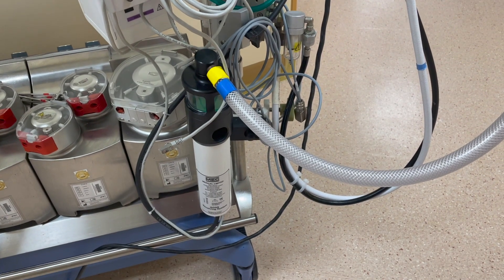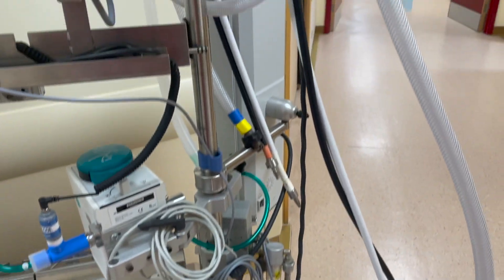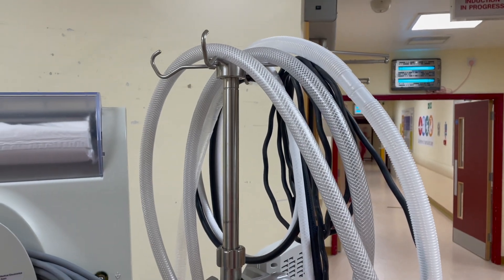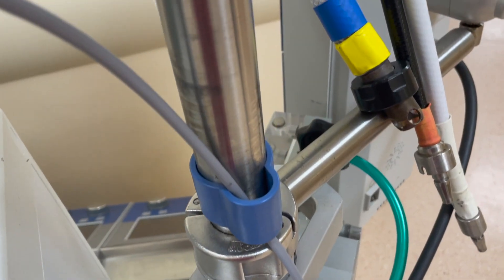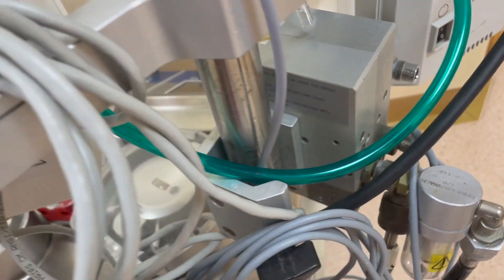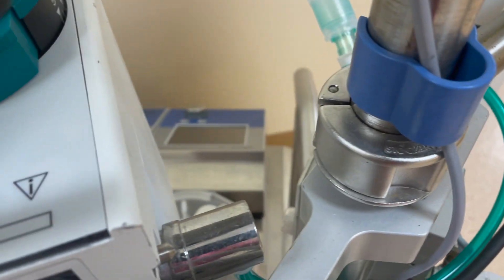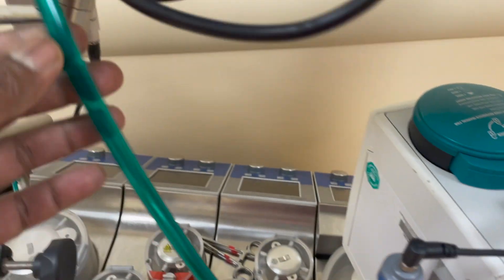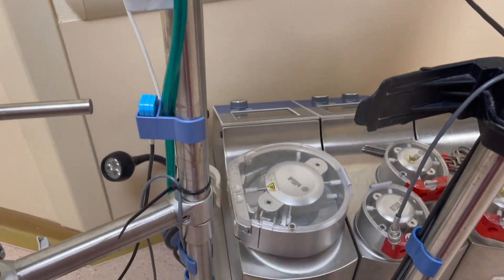Scavenging is the collection and removal of vented anesthetic gas from the operating room, since the amount of anesthetic gas supplied usually far exceeds the amount necessary for the patient. Scavenger and operating room ventilation efficiency are the two most important factors in reduction of waste anesthetic gas. Scavenging can reduce the level of waste anesthetic gas in our workspace.